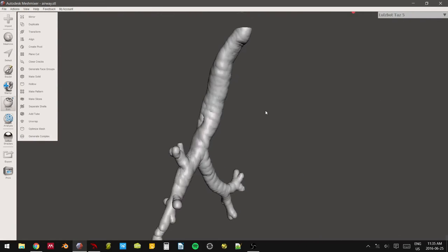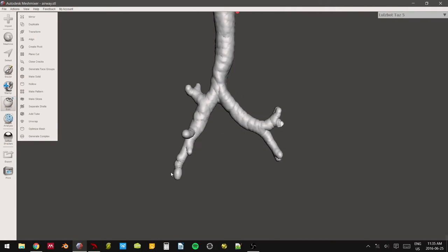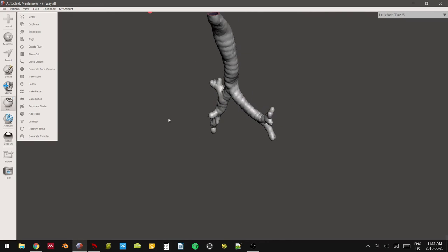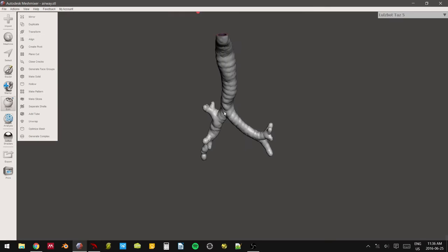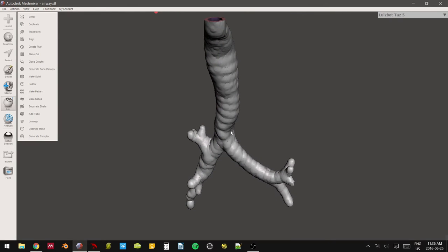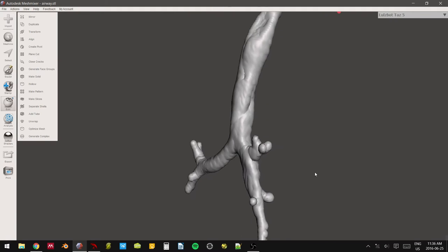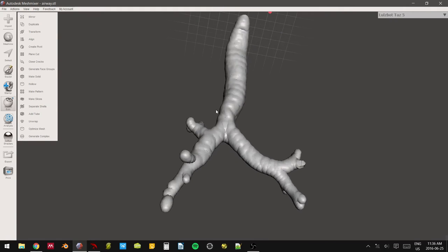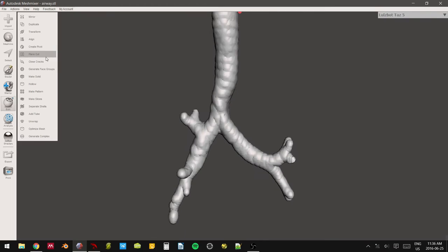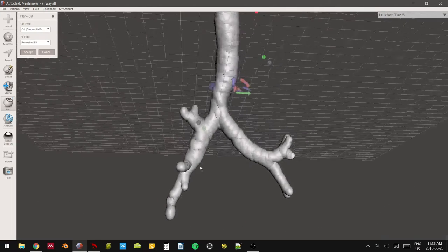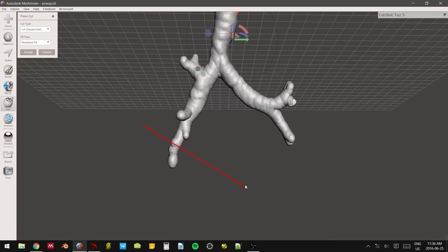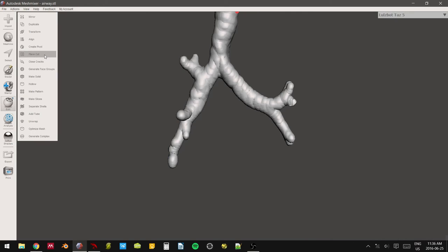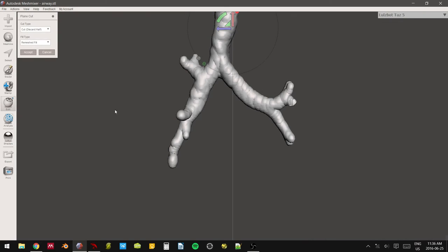You can end the cuts there. What I typically do is I also take the ends of these branches off if possible. There's no real reason for it because when you put the bronchoscope down the airway model, you're going to have a light, so you're going to be able to see in. And realistically, if we were to try and simulate what actually happens inside a patient, it's going to be pretty dark in there because obviously it's not going to be exposed to the outside world. So it's perfectly okay for you to just leave these things capped off. But if you did want to open these things up for whatever reason, one way to do it is to go into your plain cut menu.